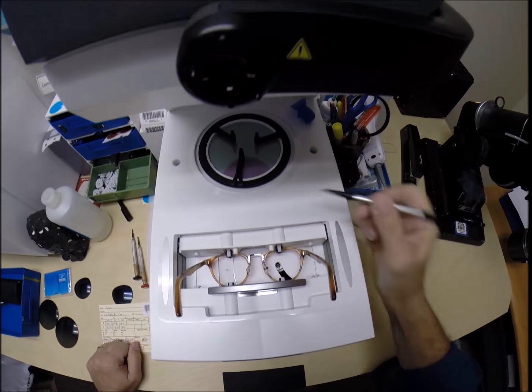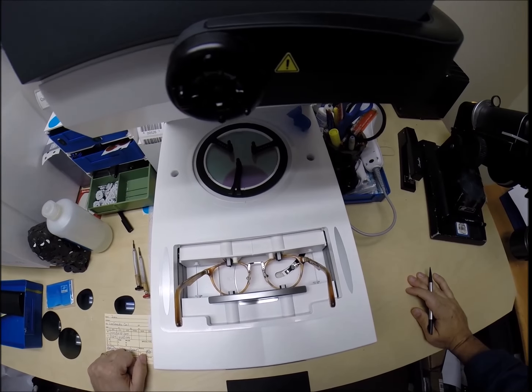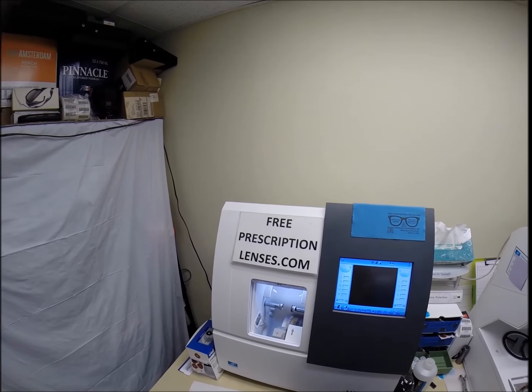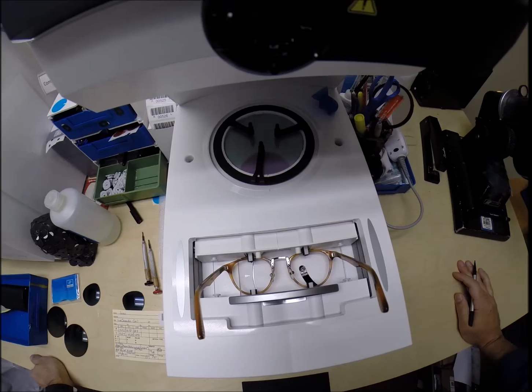A little stylus is going to pop up and go around and trace the inside bevel of the right side of the frame before doing the same thing on the left. Here at freeprescriptionlenses.com where everyone loves a bargain and no one is disappointed in quality.